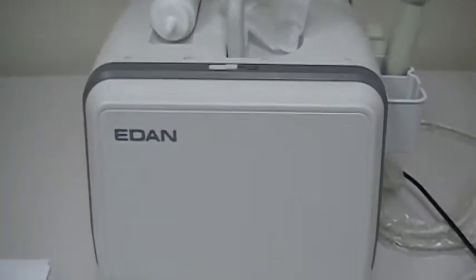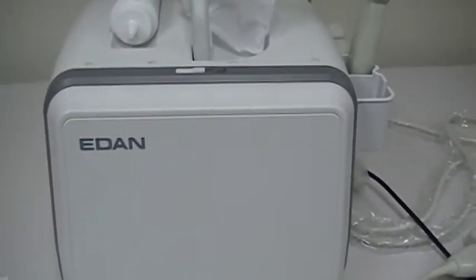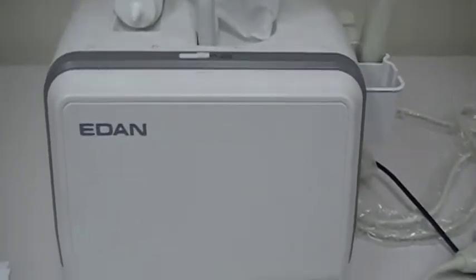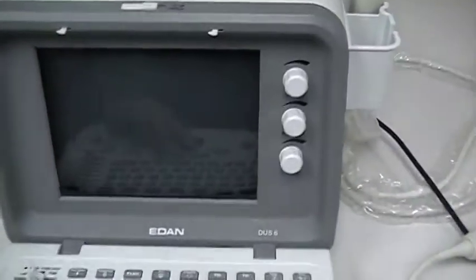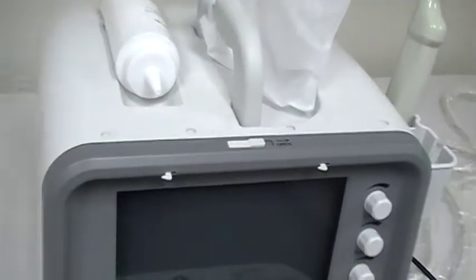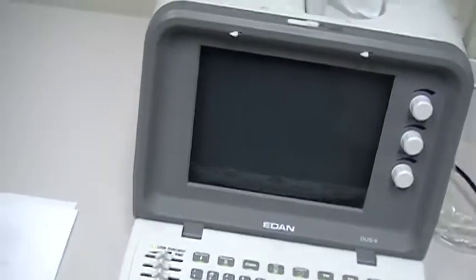In this video we'll see how to make an exam with this machine. First we open the keyboard of the machine and then start the machine by powering on.